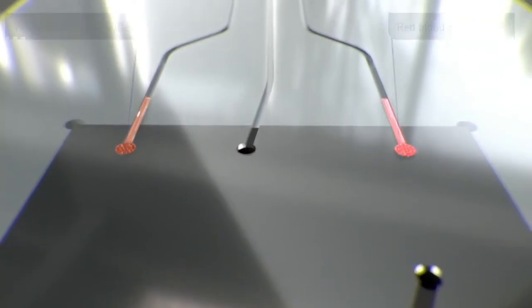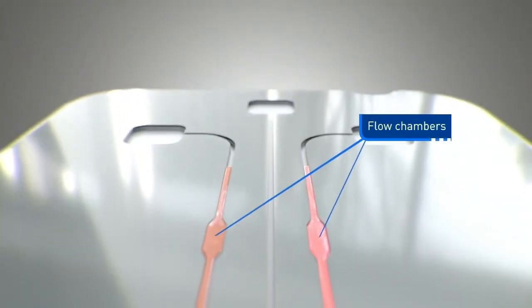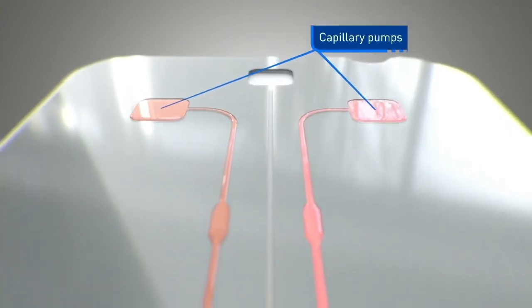Both enter into the test card, pass through the detection or flow chambers and make connection with capillary pumps that provide a pulling force.